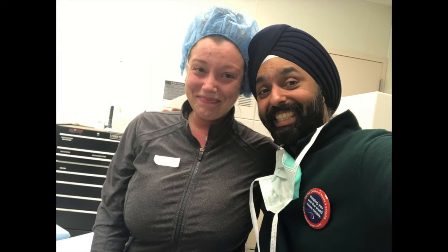Really a fantastic experience as a first day for me. Here's my staff with the Zeiss team — we're all happy taking care of these patients. I recommend those of you thinking about performing SMILE: it's a very efficient, intuitive procedure, and the outcomes are amazing. The patient you just saw was 20/20 in the right eye and 20/25 in the left eye the next day post-op — very comfortable, no complaints overnight. You get the best of both worlds: the comfort level of LASIK and the safety of a surface ablation. Please email me anytime with comments or questions. Thank you.